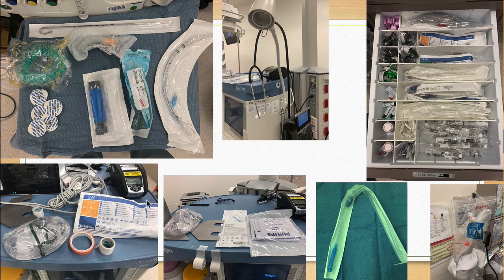And this is the top of the anesthesia machine in different ways that you can set it up. I usually go for something like this, where I put a backup blood pressure cuff, a pulse ox, the Christmas tree, which is this L-shaped metal piece that can hold the corrugated tubing once the patient is intubated while you're taping, or just during the case itself. I like to hang tape just because it's easily accessible, and I tend to put the pink tape directly on the part of the machine that the bag is attached to. That way it's easily accessible once the patient has been intubated, but again, your mileage may vary.